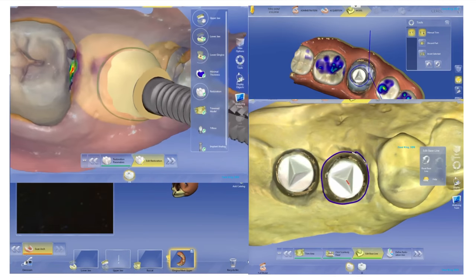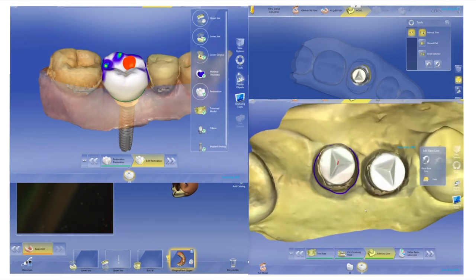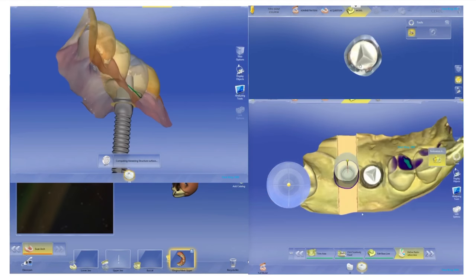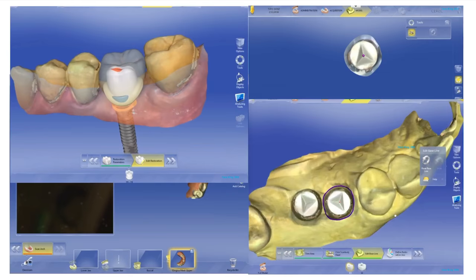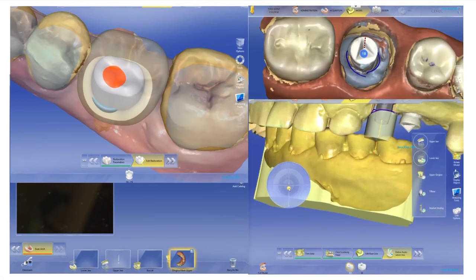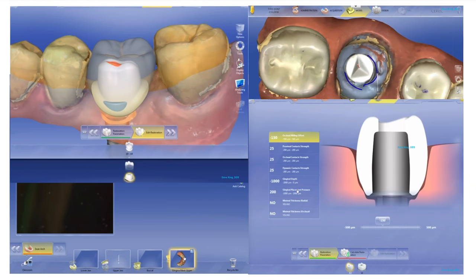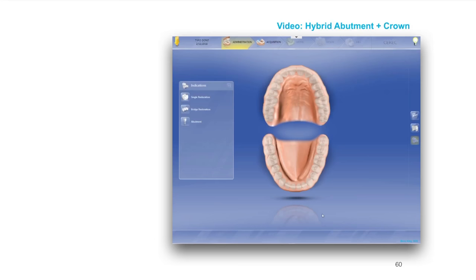Pay special attention to the details as we go through here. You want to make sure that you take time away from patients to invest in appropriately designing, taking the time to know what you're doing so that you're not sweating when the patient is sitting there watching you. This is the whole entire process of the design and I'm going to walk you through it.